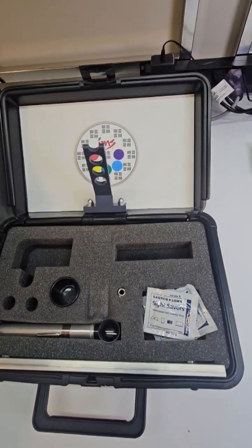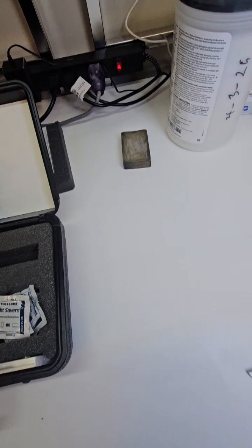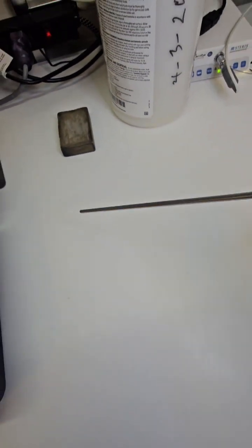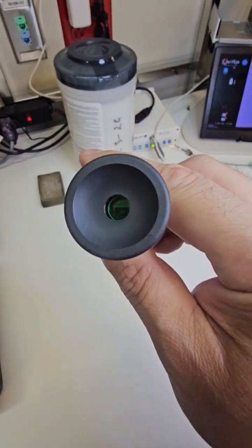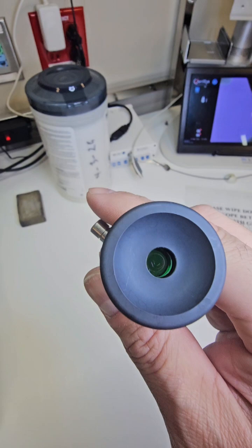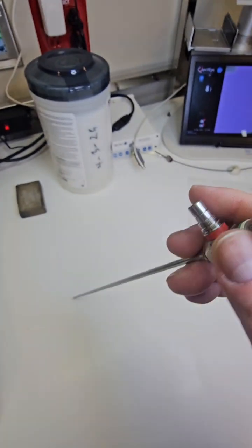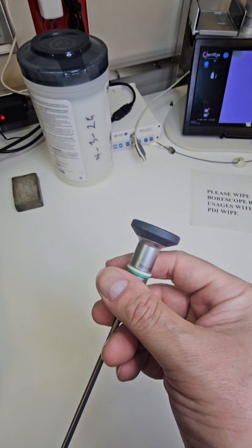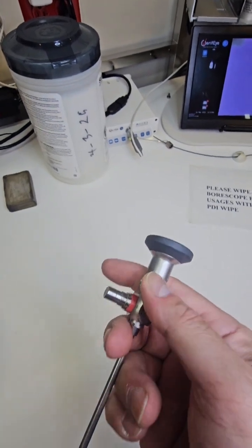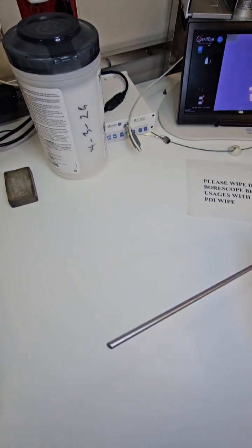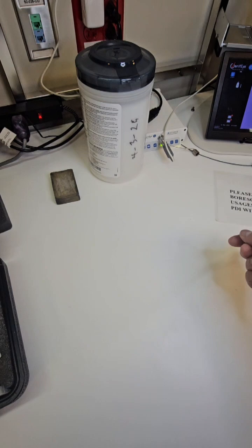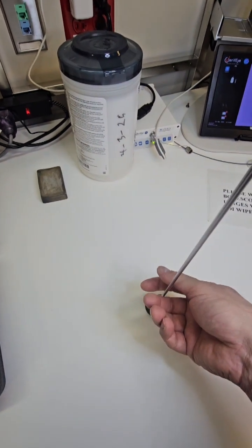For all you old school folks out there, you know what that device is right there, that little kit. That is really old. I couldn't find my little cheat sheet card to do the visual inspection, but you want to look at that eyepiece, that proximal eyepiece, make sure that it's set well on the lens there and not separated, no cracks or anything like that.